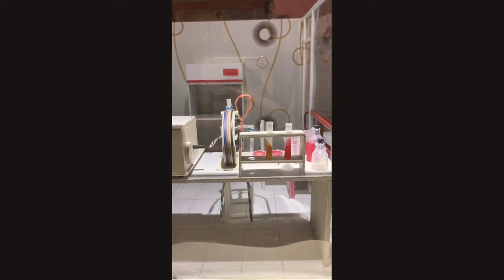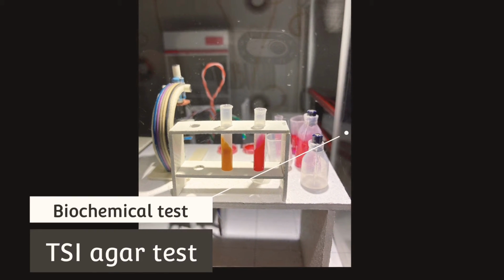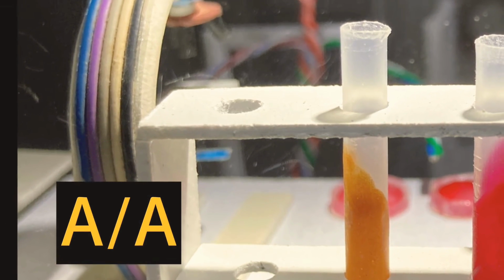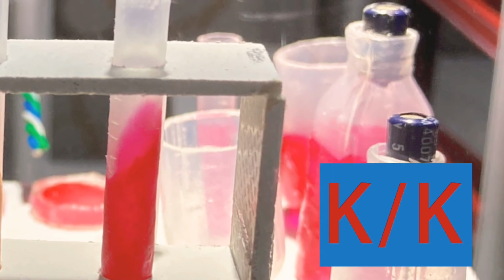As you can see, there are examples presented which demonstrate one of the many methods in bacteriology, which is a biochemical test, specifically the TSI test. The left tube indicates an acid slant and acid butt, while the tube on the right indicates an alkaline slant and alkaline butt.